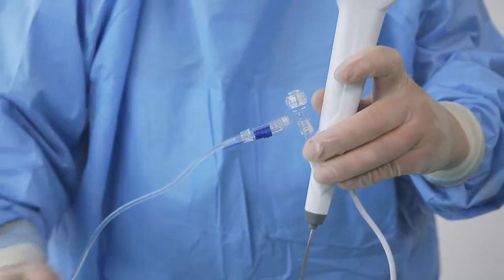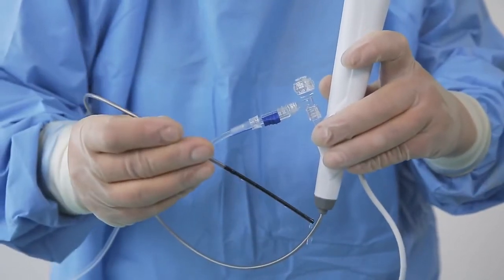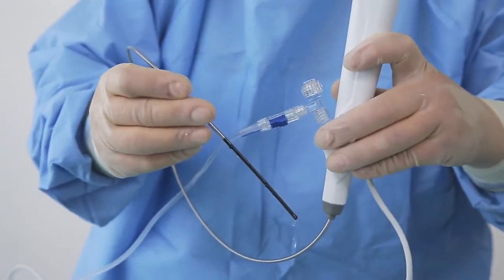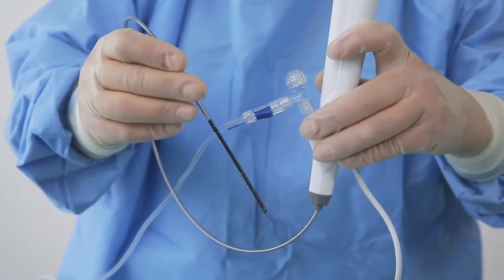Once open, water should flow spontaneously. Compression of the pump will produce a defined jet of water.